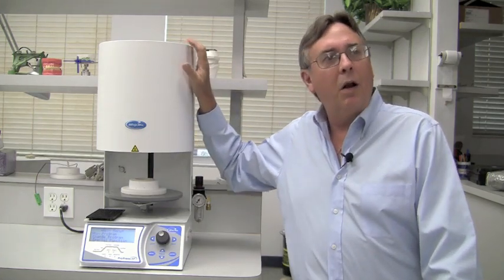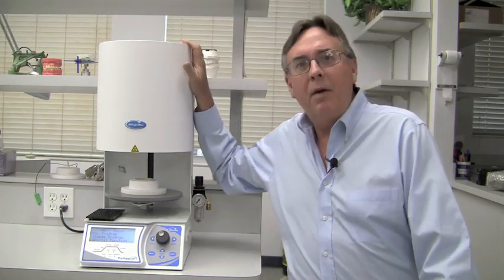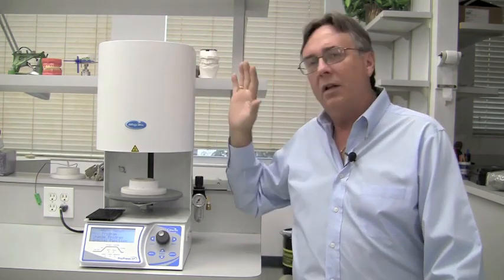One thing that really impressed me about this furnace right off the bat is the pressing methodology that it uses, which is a little different than other furnaces on the market in that it is air pressure driven but in a very unique way.